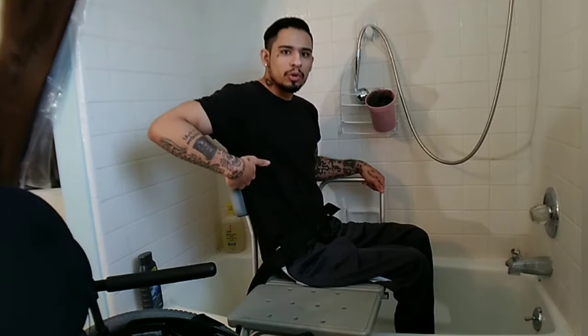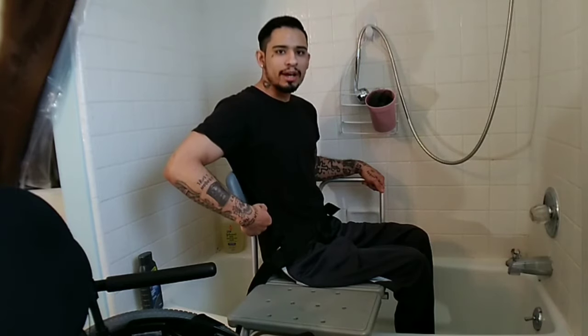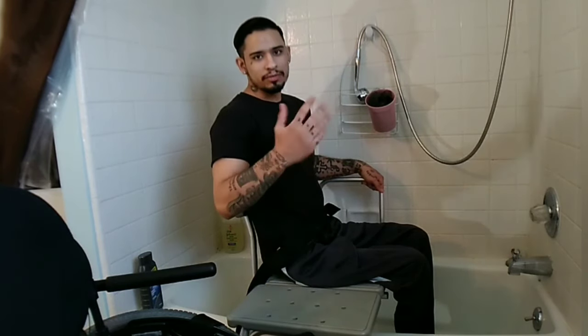For the seat, I like to have the backrest higher up versus the lower ones. That's why my wheelchair personally has a higher back — it fairly supports your back. Because I'm paralyzed up here and need the back support; it's hard for me to sit up since I just keep falling back.